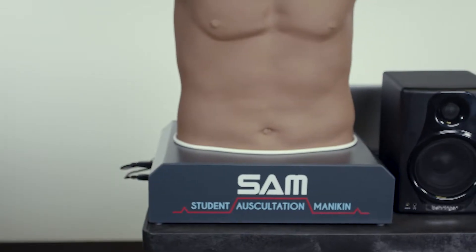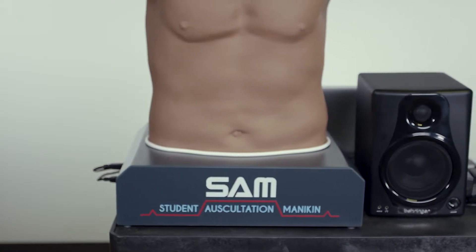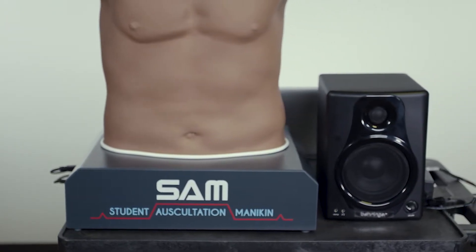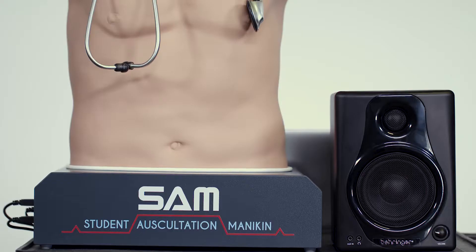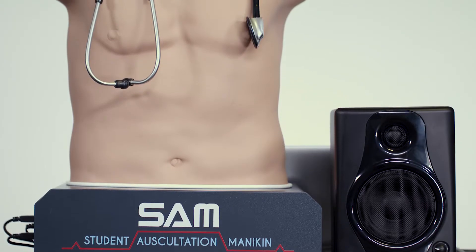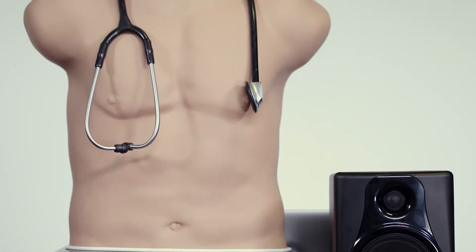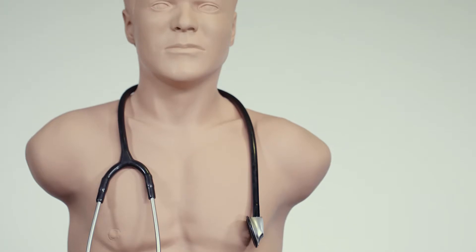Weighing less than 20 pounds, SAM 3G is very lightweight and portable. Instructors are able to incorporate this auscultation trainer in the simulation center, classroom, and auditorium.